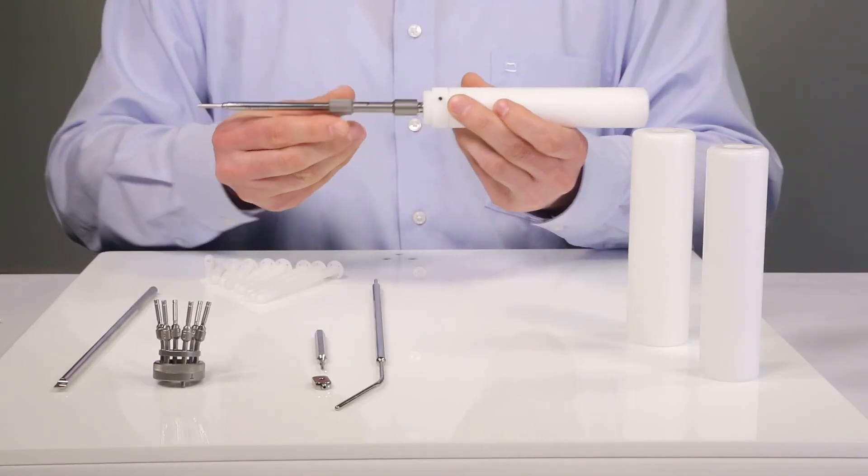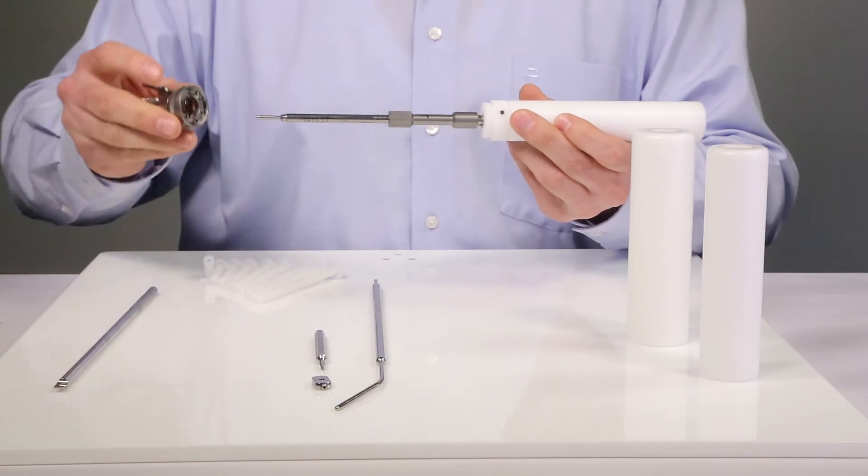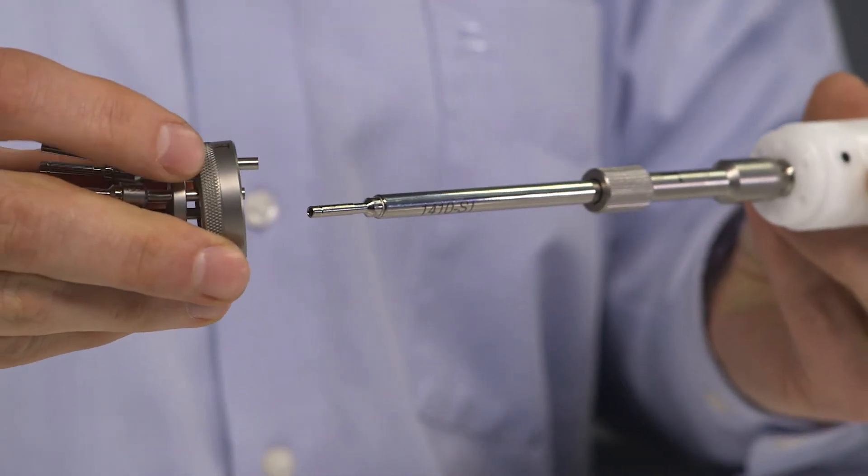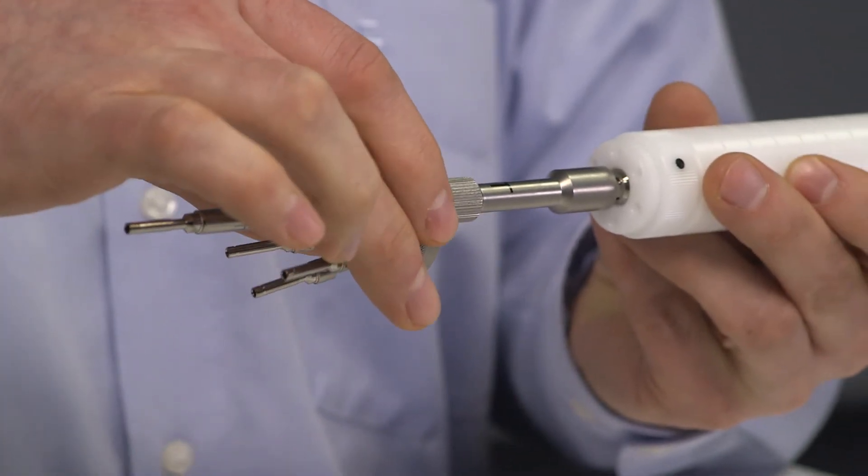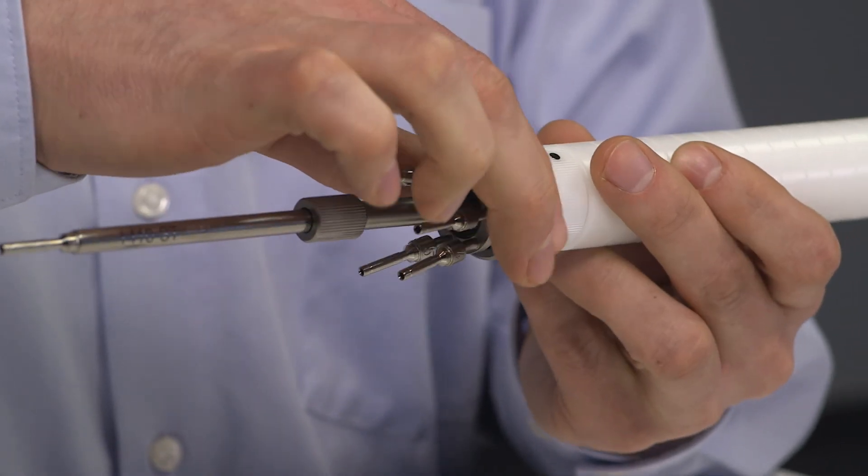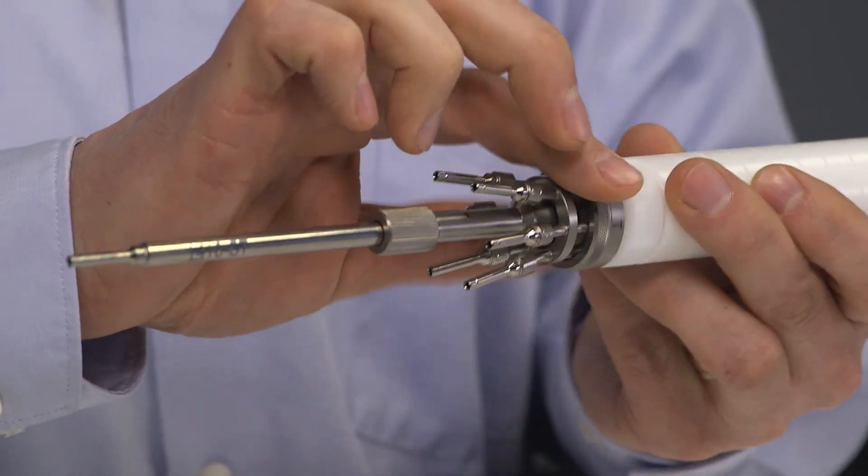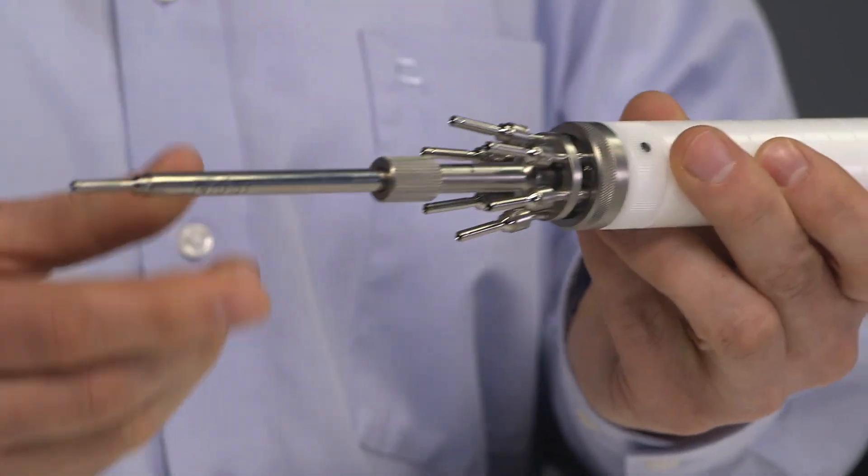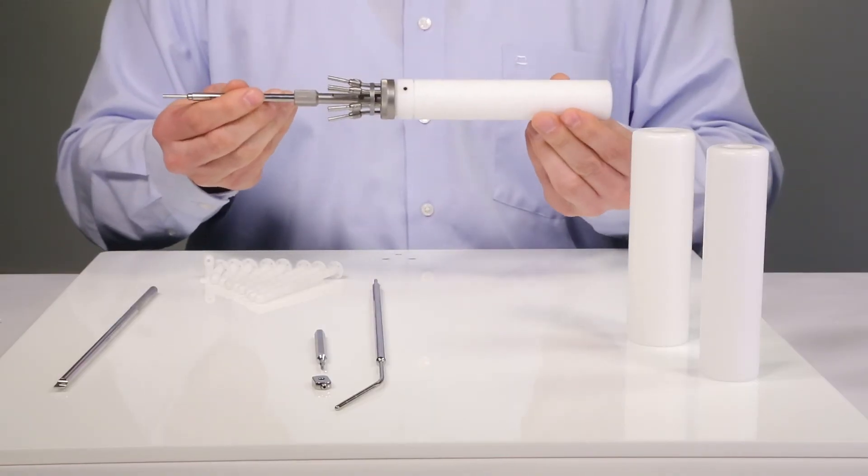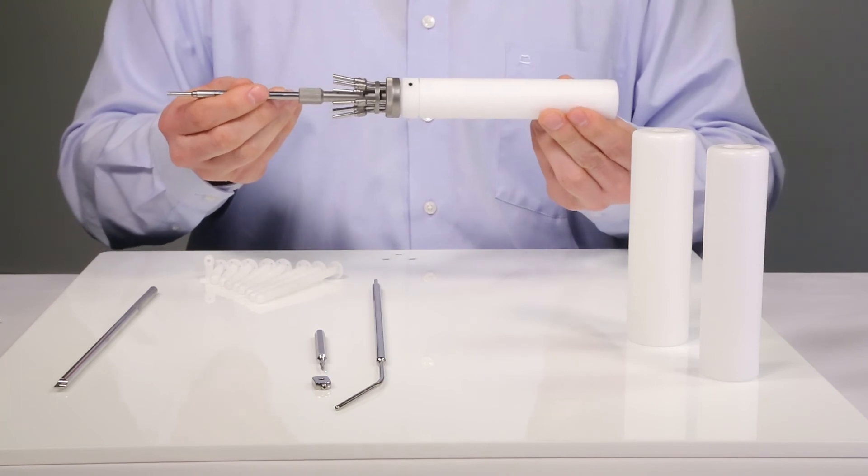The docking unit with the long pin of channel 2 is attached. Now the stump plug configuration is complete for the treatment of vaginal cancer.